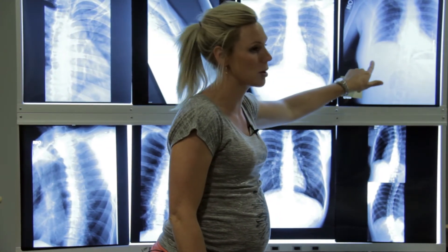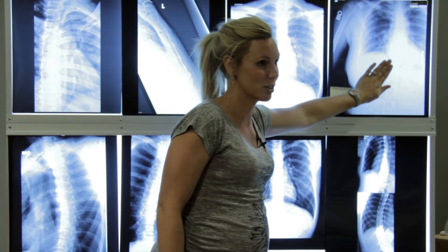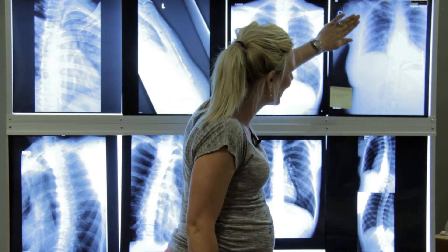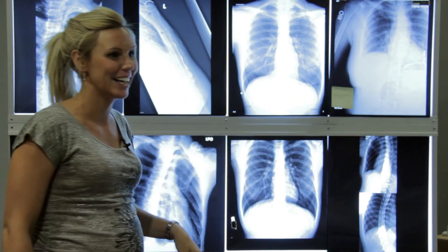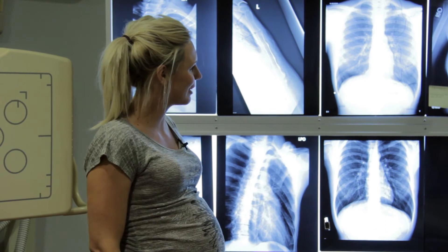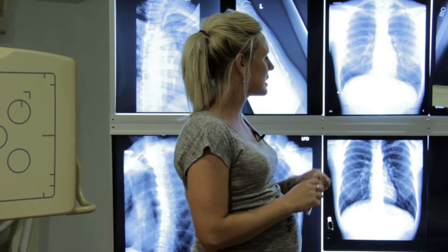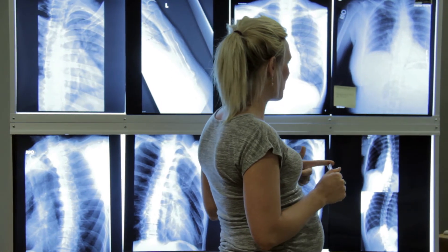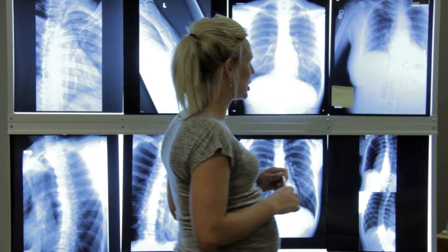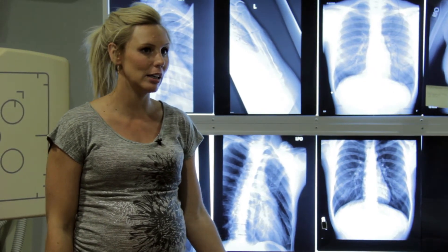Look at the breast tissue — if this is lower rib pain, no wonder we can't see the lower ribs. There's so much extra tissue in the way. I guarantee if you move it, get it up out of the way, you'll be able to see through that. Have them move it — it drives me crazy. When they lay down it kind of takes care of itself, but on uprights it's a real problem. Throw a BB on so we know the area of pain, and your technique and collimation are all going to be critical on rib exams.